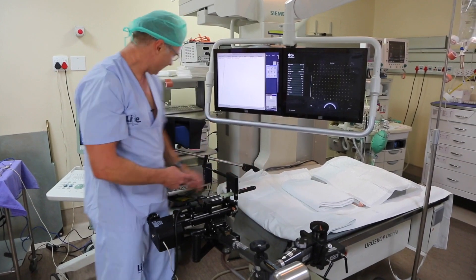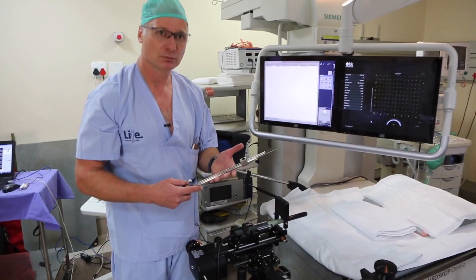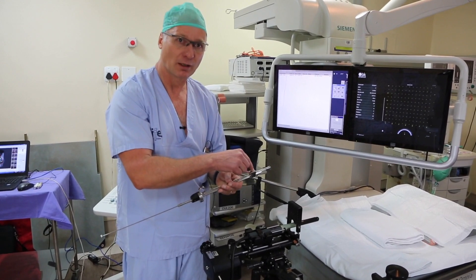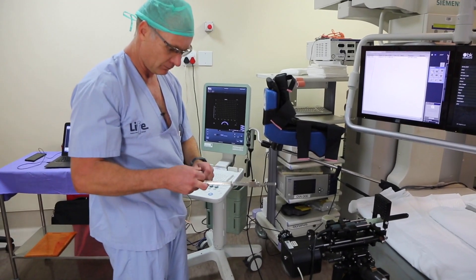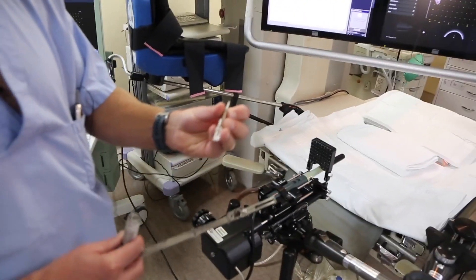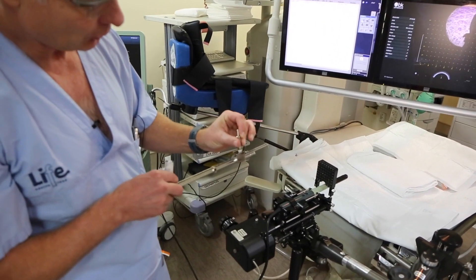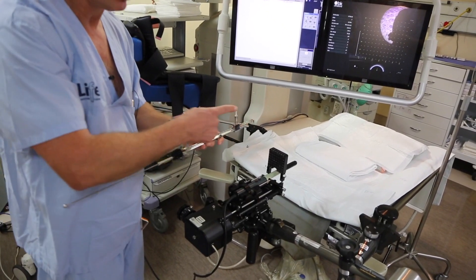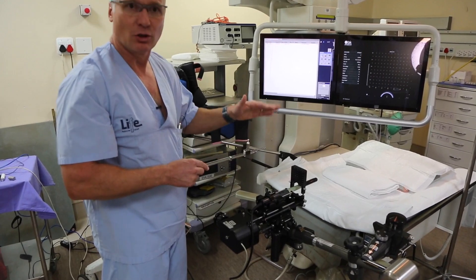There's a needle in here. We then connect the applicator to the needle. You can see it's got a plunger and space for the cartridge. It's a spring cartridge so it pushes the seeds down. You can physically see the seeds in there with a spring system. You slot it in, attach it to the needle, and then push with the plunger. The seed will drop out at the end of the needle. You go through that needle, place all the seeds, and then go to the next needle.